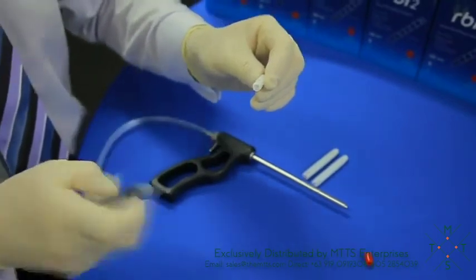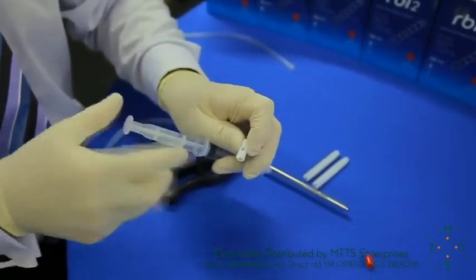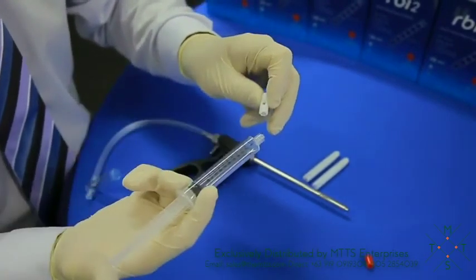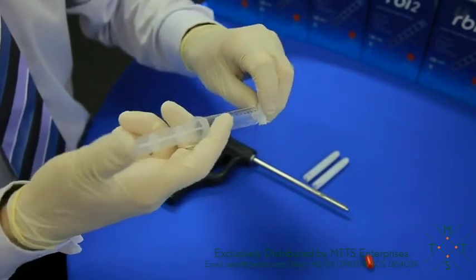Now very important, when you take your syringe, fill it with saline and place it on the capsule hole, not from behind. It's very important to place it on the capsule hole.